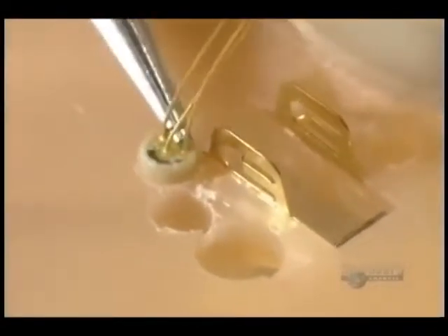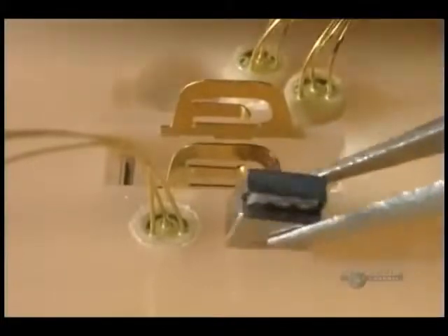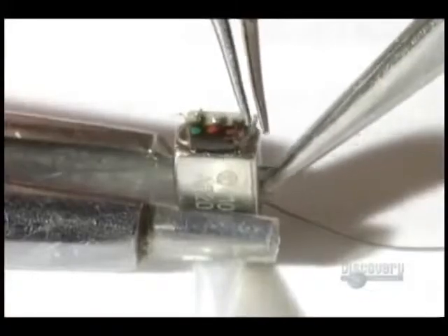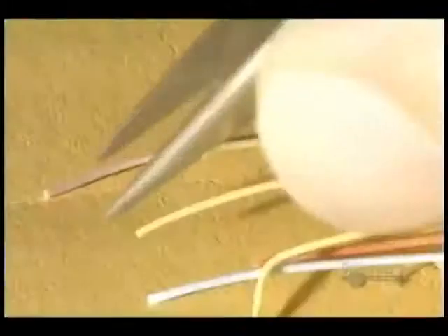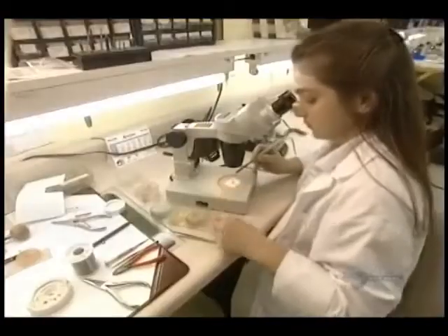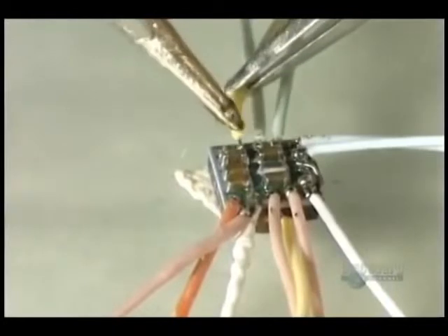These components are tiny — here's the volume control, the miniature microphone that captures sounds, and the earphone which functions as a speaker. This tiny braided wire of seven conductors is soldered to the amplifier and the other parts of the prosthesis with pewter. The hybrid circuit is then inserted into a silicone casing which assures it protection.